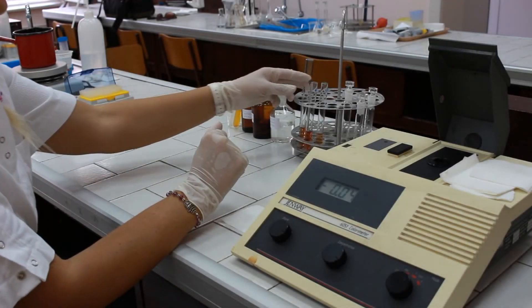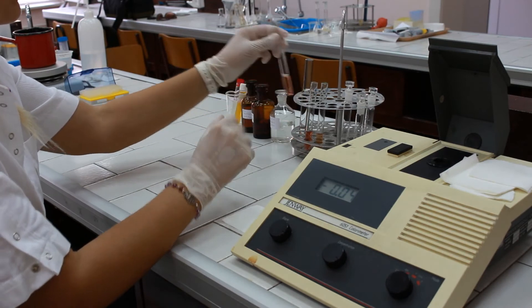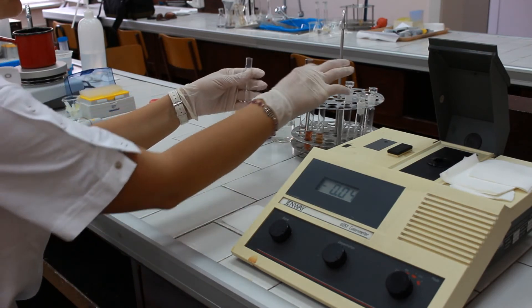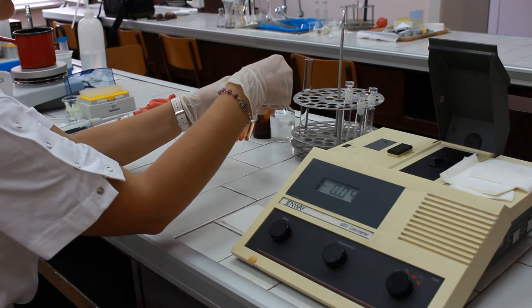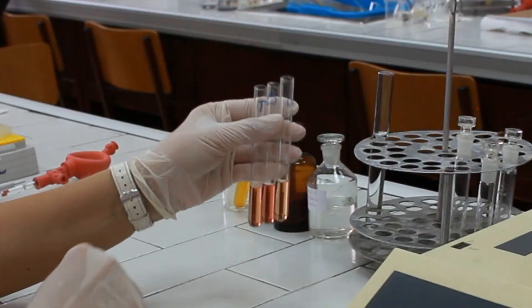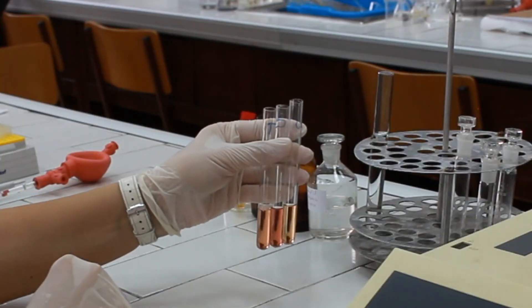After the incubation time, you can notice the formation of a pink colored complex that is to be measured.